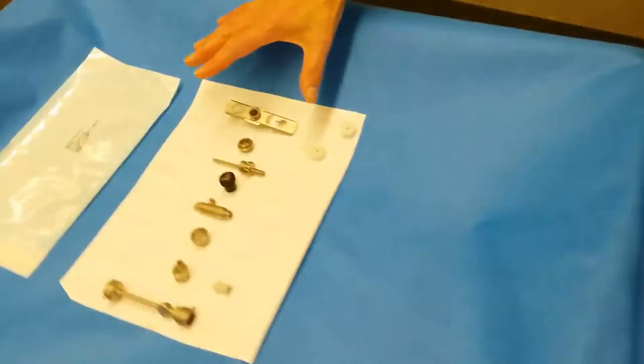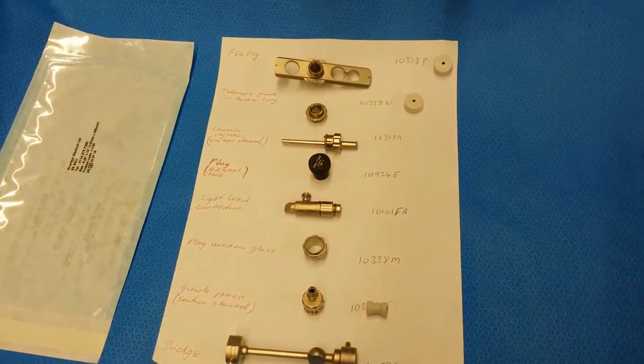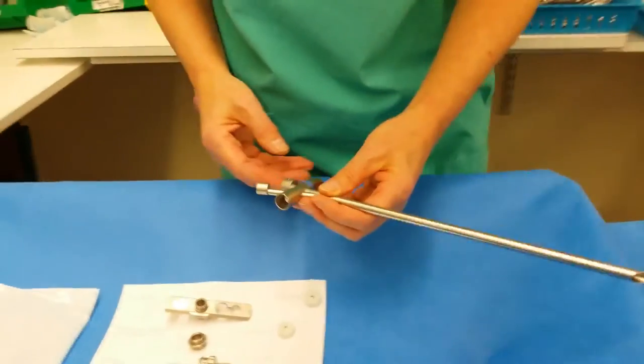Also on the top tray, you'll find all these connectors. Now we're going to show you how to add the connectors to the scope.